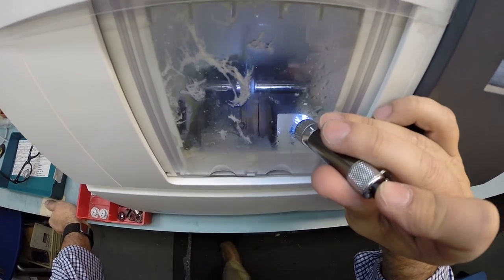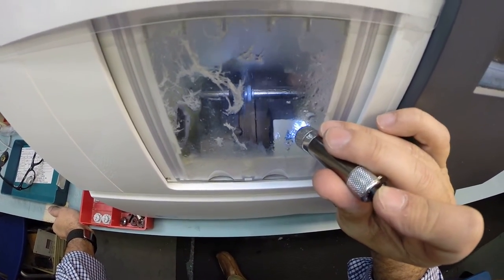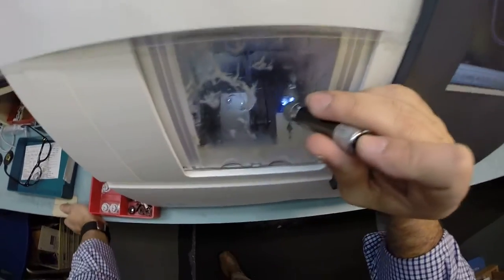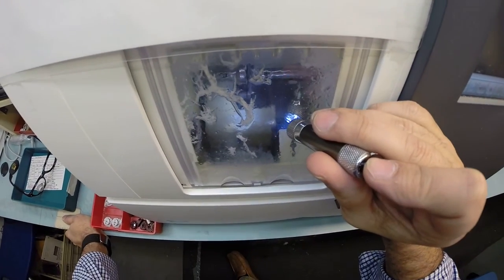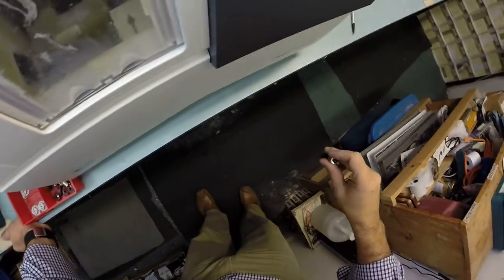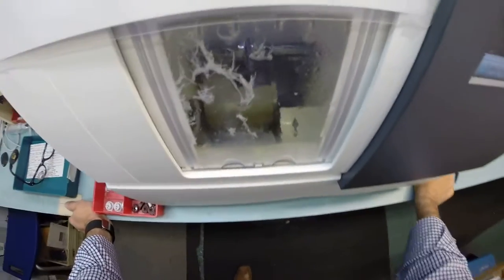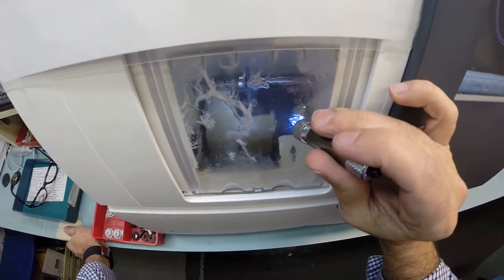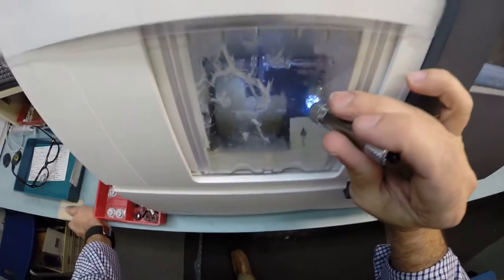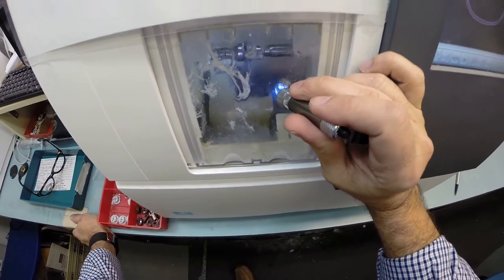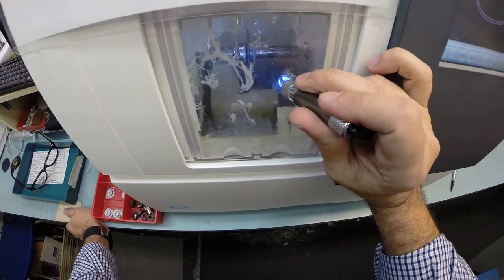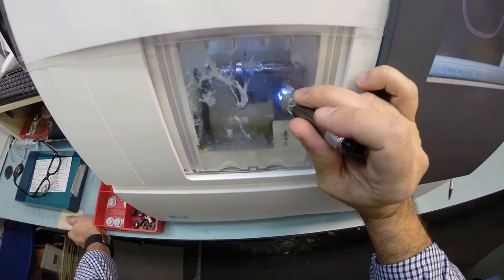So water has kicked in, which it does for the last 20 seconds of the cutting cycle to wash away any optical debris. Sorry about that. I should have cleaned up if I knew I was going to have company over. You know how it goes. You're so busy working, you forget to clean. Just like the floor. My wife always says, why don't you clean the floor up? The reason why I do that is that if anyone comes over, it looks like I've been working. If you never clean up, people think you've been working hard all day long.